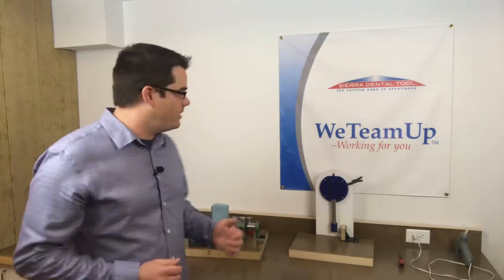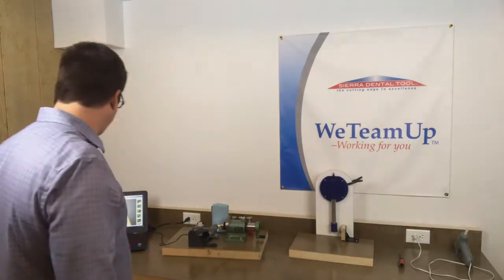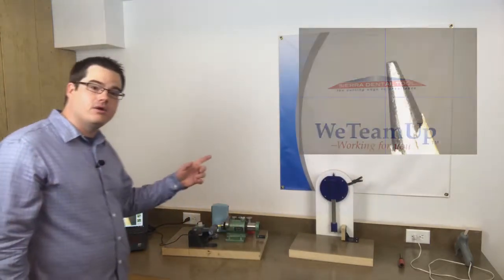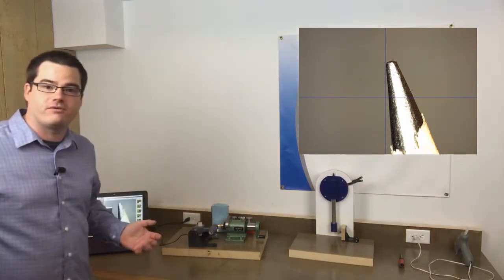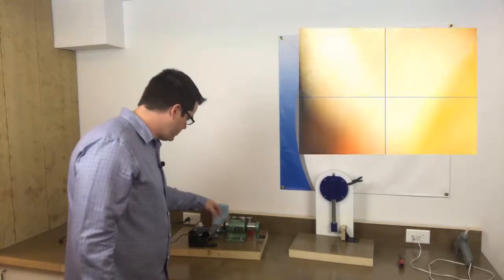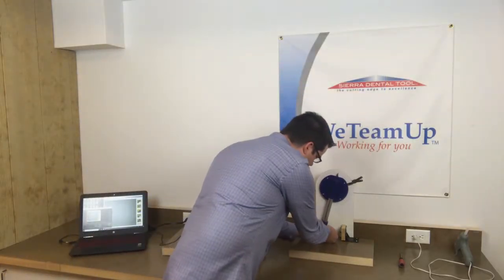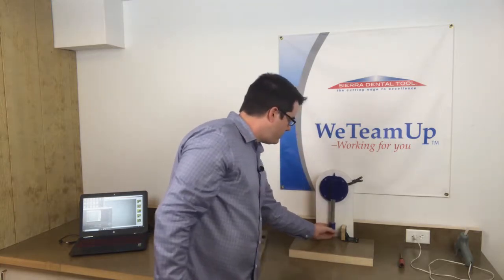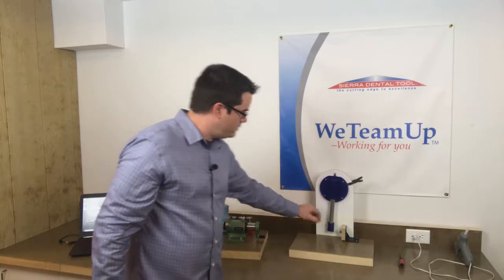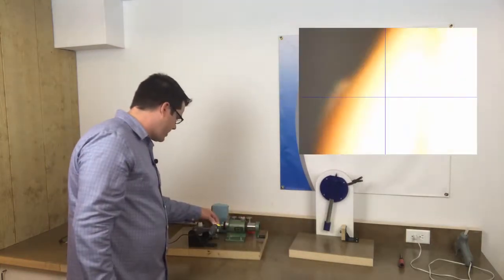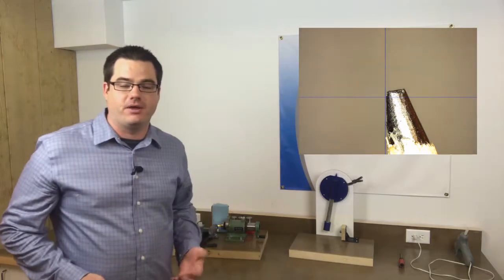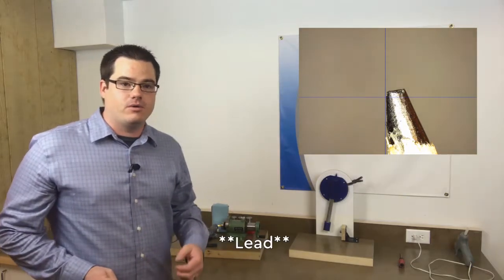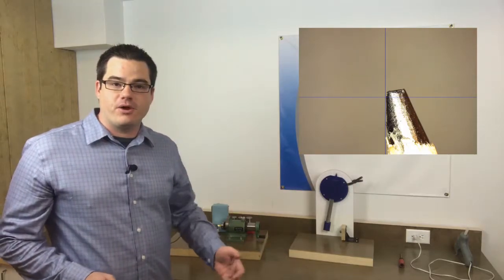So I'm gonna demonstrate the force output of the rig. I've previously determined that this is the best stop point for that. What we're gonna do is look at the pencil here, it's under the microscope and you can see that it's pristine, it's freshly sharpened. We'll slide it here into the pencil holder, do an impact, pull it out, and let's take a look at what happened under the scope. What you can see is that it just barely chipped the tip of the tool, and so now that we have our force figured out, let's break some tools.